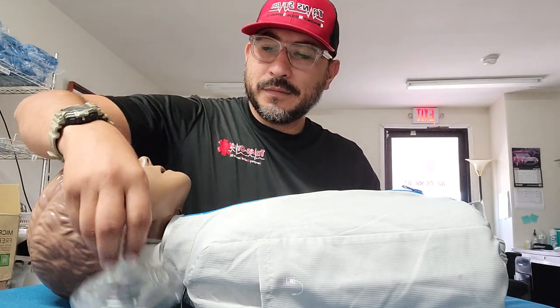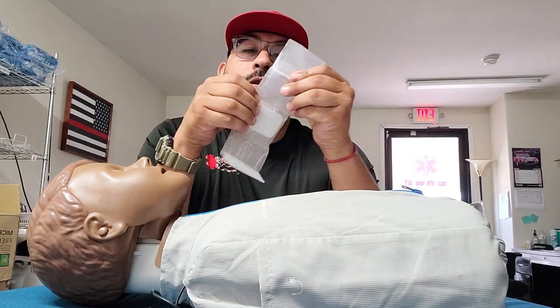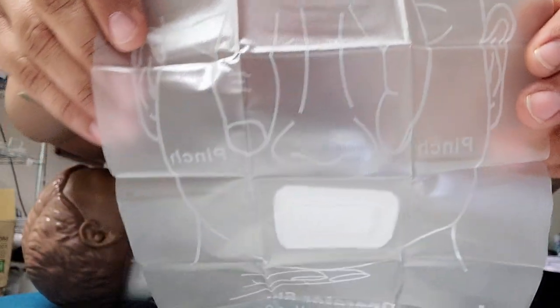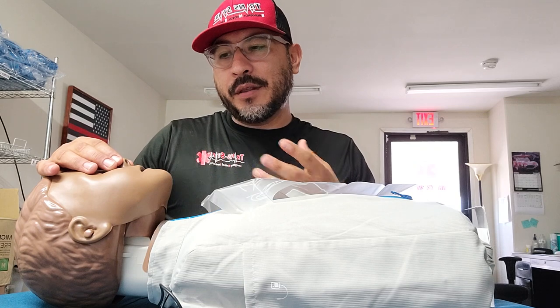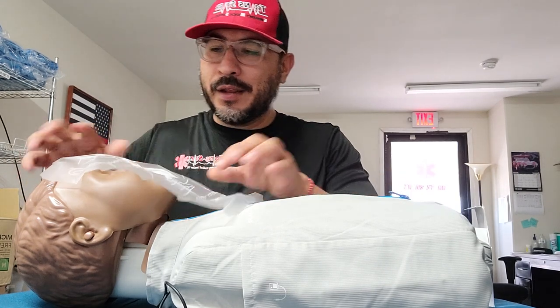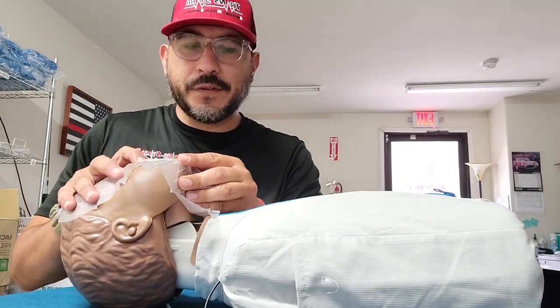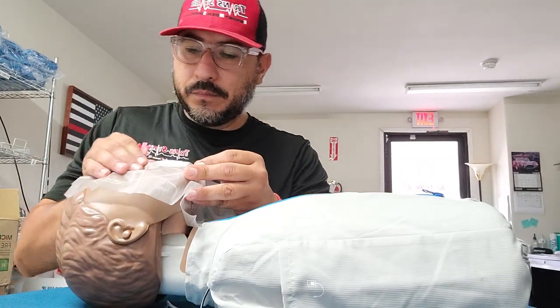I'm trying to get some editing software, so excuse the ums and ahs — that'll be in the future. So this is a plastic shield — it's kind of the same thing. It also has this one-way valve, and it has a diagram showing how to place it on the patient's face. Since the child's anatomy may mean your mouth is bigger than the child's, you want to pinch the nose so that when you breathe into the mouth, the air goes straight into the trachea and into the lungs and is not escaping through the nose. You also want to reposition the head with a head tilt chin lift, make sure nothing is obstructing the airway, and just breathe into the patient again, just like we did.